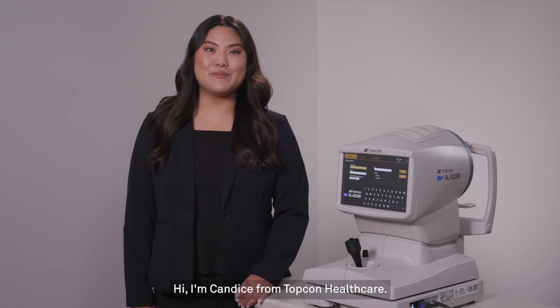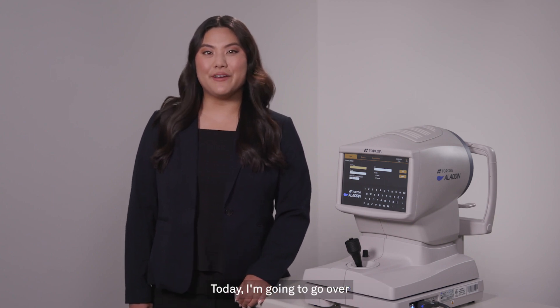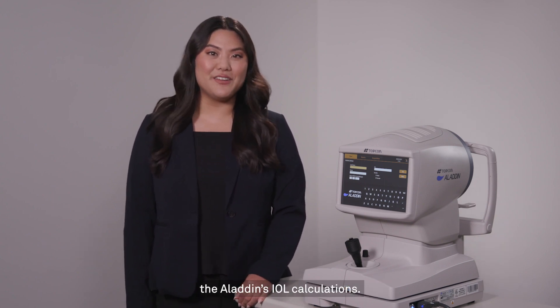Hi, I'm Candice from TopCon Healthcare. Today I'm going to go over the Aladdin's IOL calculations.